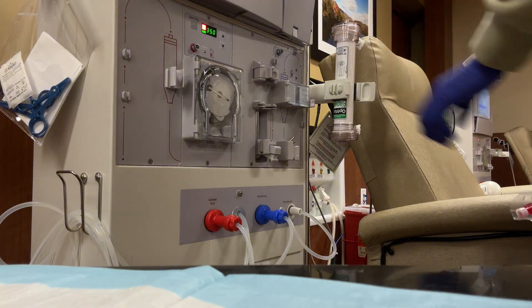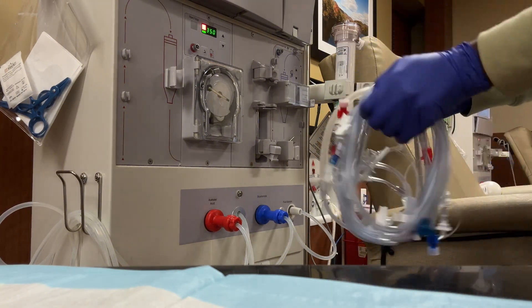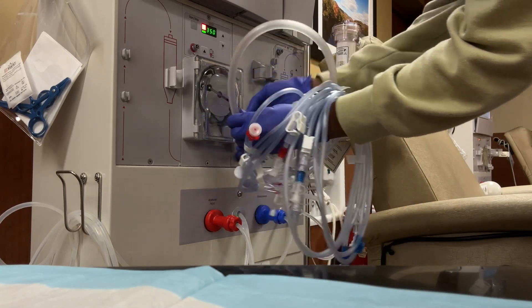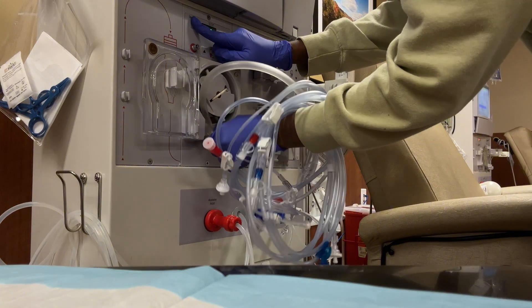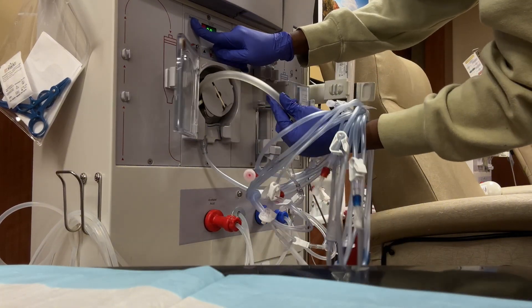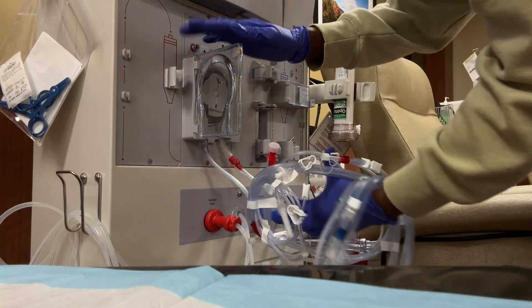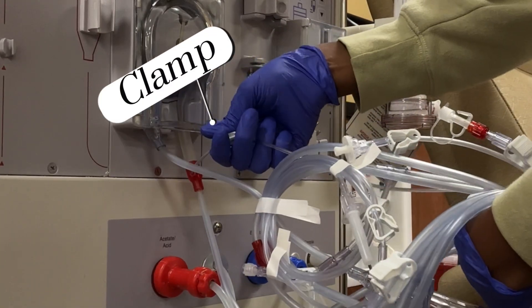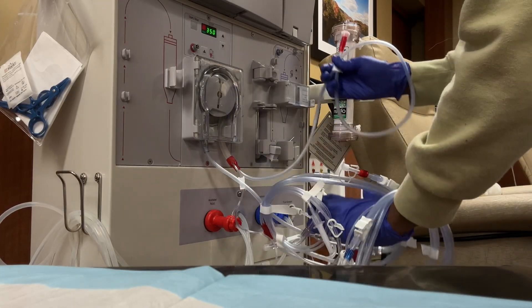Go ahead, watch it. All right. So as you see, we got our dialyzer — make sure y'all check that prescription for that. And now I am inserting my line into the blood pump. Had to move around to get it in there. Clamp. I clamp as I go.